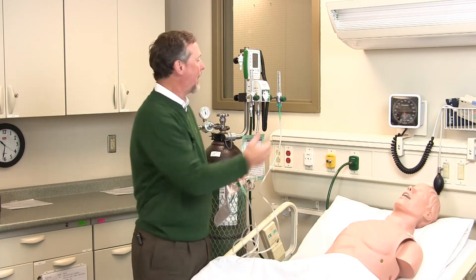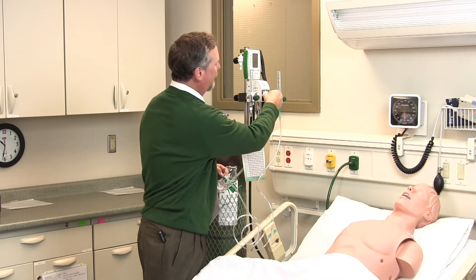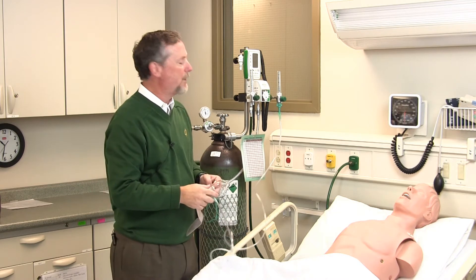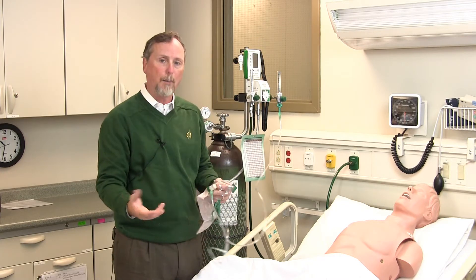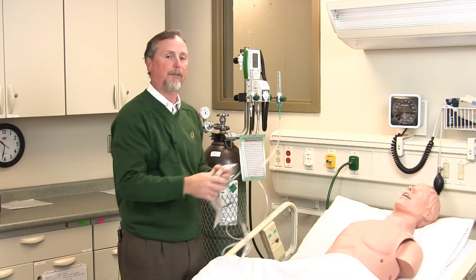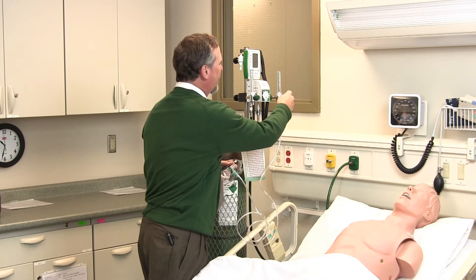It is important to note that if this is 40% oxygen, the remaining balance is 60% helium. Since this is an 80-20 blender, this blender goes from 20% oxygen all the way up to 100% oxygen. We include 100% oxygen just in case during therapy there's an emergency — the blender can be increased to 100% oxygen, and if resuscitation is necessary, you don't have to undo everything. You can just hook up your resuscitation bag to the blender, dial it up to 100%, and go from there.